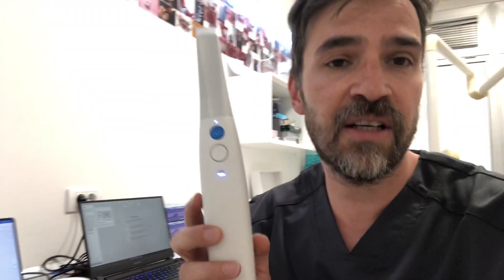Hey guys, I just wanted to do a quick review of the most popular laptops for the Medit intraoral scanner. In this case I have a Medit i700 wireless and two of the most popular laptops.